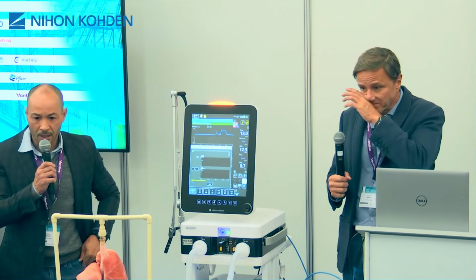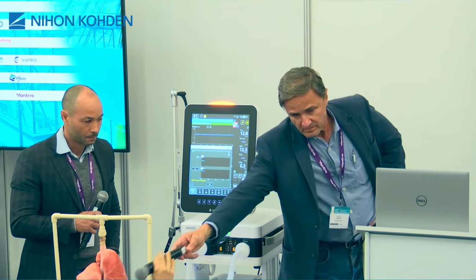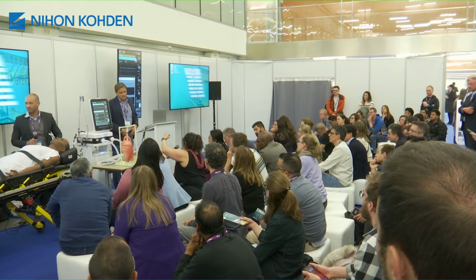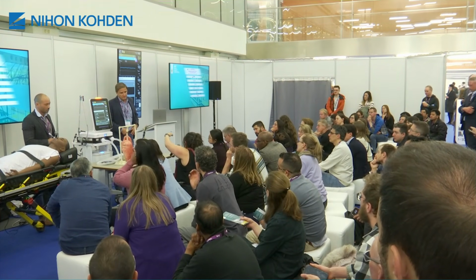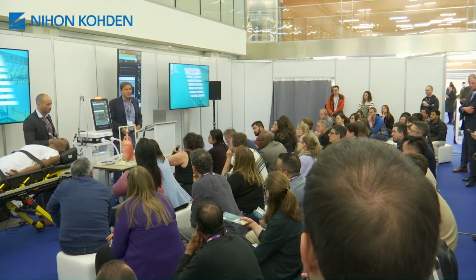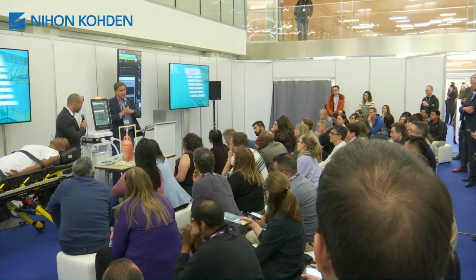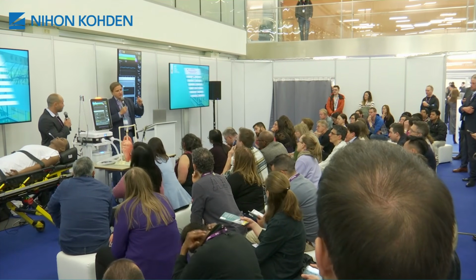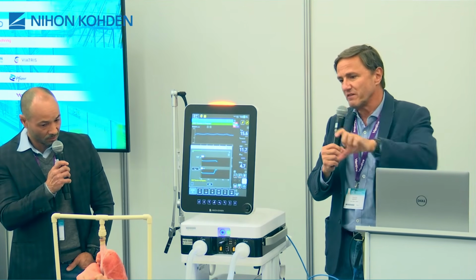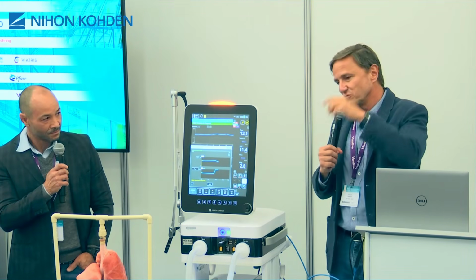Do you have a question, Sharon? When you did the recruitment maneuver and you had the asymmetric compliances, there's a moment in which you can see the compliance afterwards finally drop. Can you consider that already a PEEP titration? Yes, if you are in a hurry, you can use this as a PEEP titration, but it's a little bit sloppy one because you're jumping 5 to 5 centimeters of water. If you want to be more precise, you do 2 by 2.